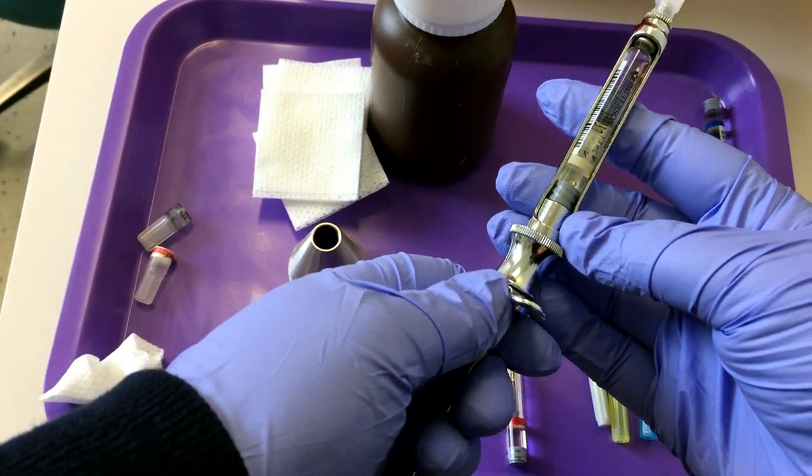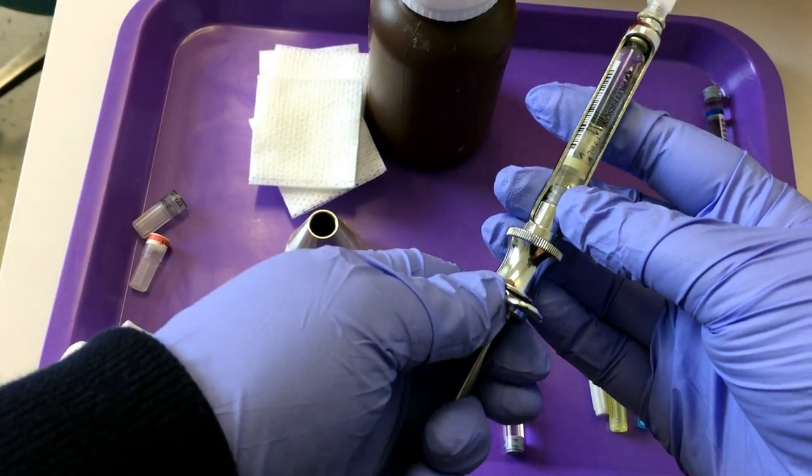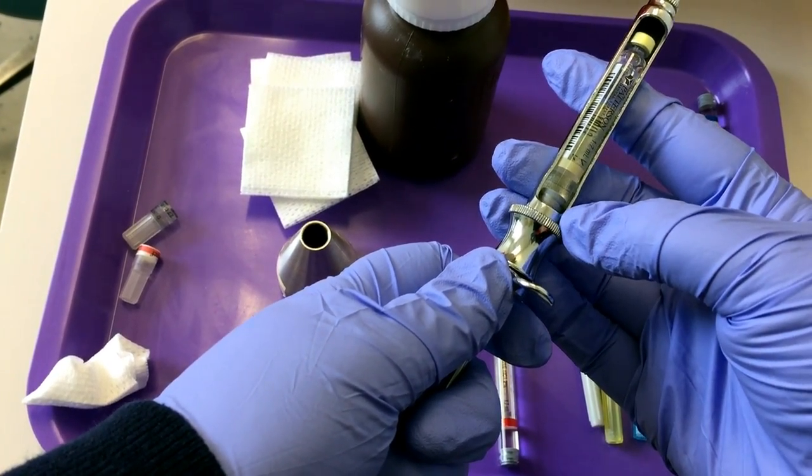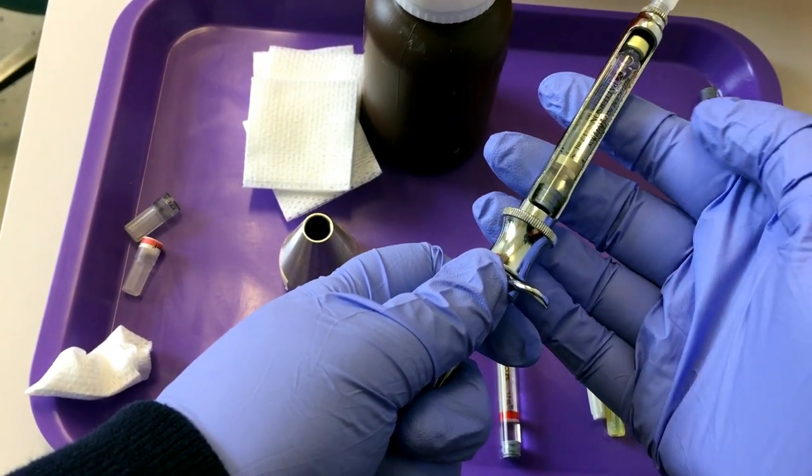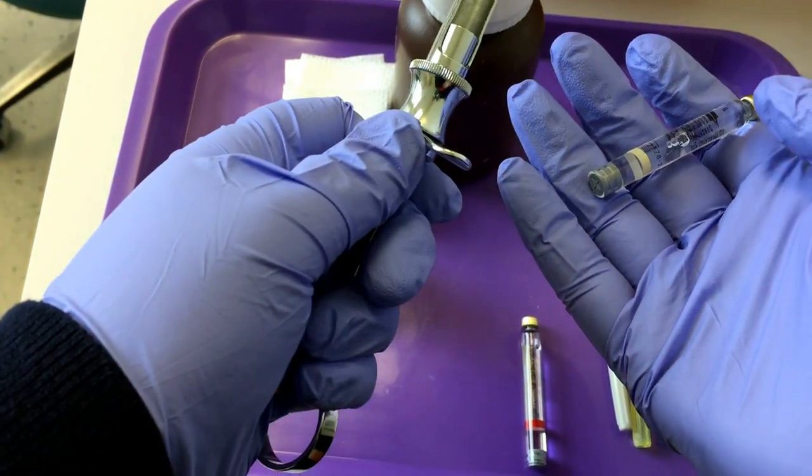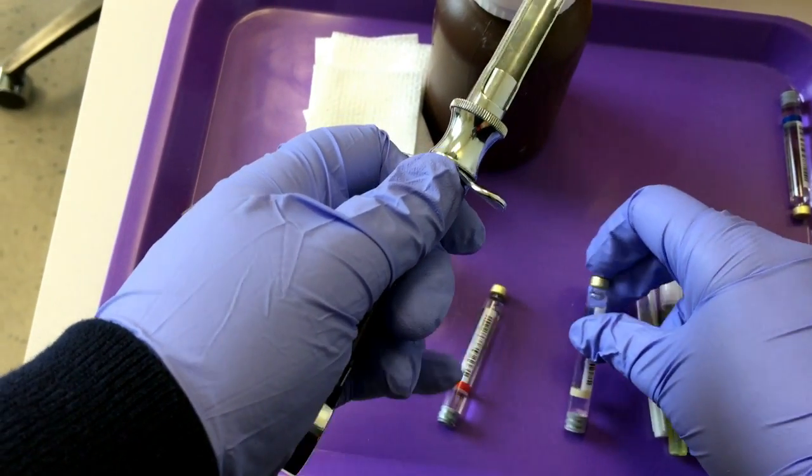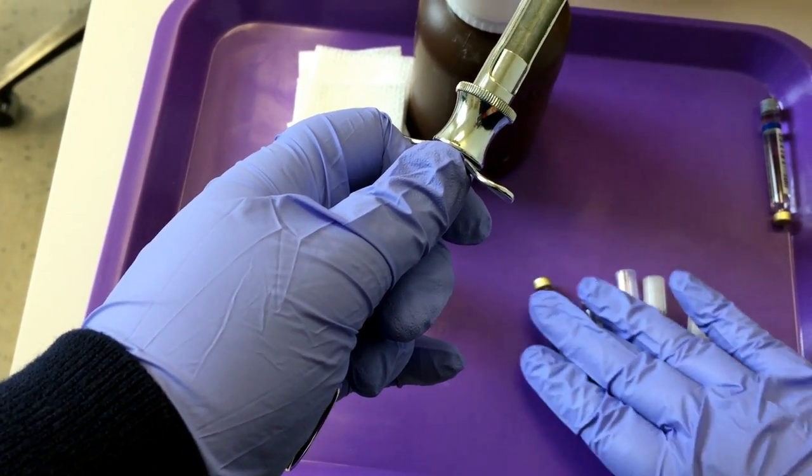We've got to make that metal cylinder disappear. Pull. You'll hear the pop. That's the harpoon disengaging from the rubber stopper. Tip it out. Record this on the patient chart before you throw it away.